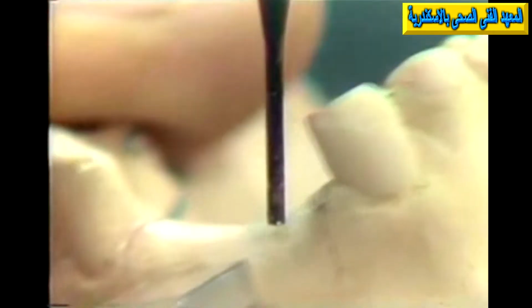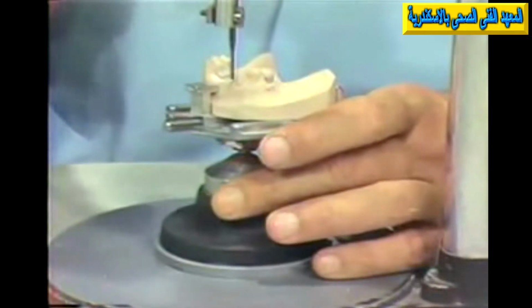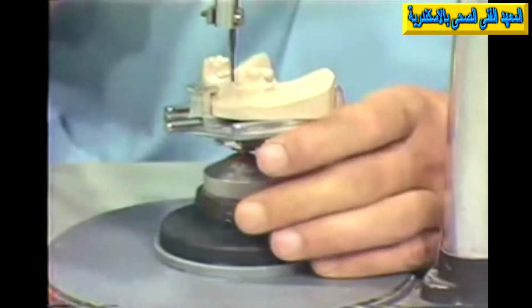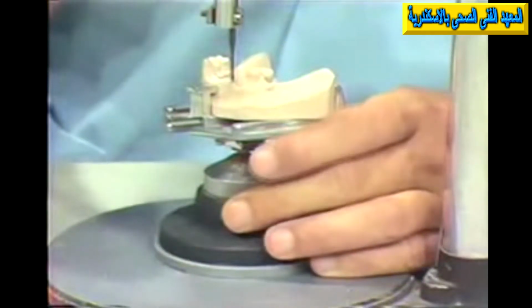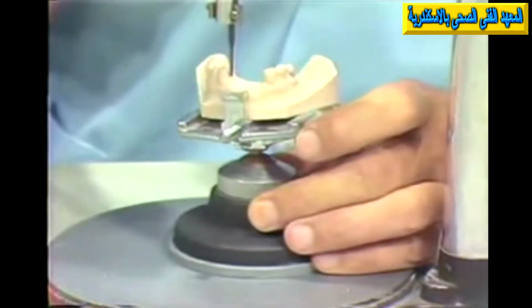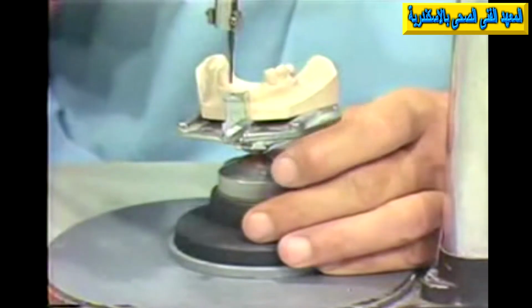On the other hand, if we chose a path much more straight up and down, so that the replaced tooth in this area could almost slide right down that mesial plane, we could then fill that space and perhaps have a much more aesthetic shape to our incisor. It would look much more normal. In this particular case, this would be a direct determinant of the path of insertion. The path of insertion here would allow us to make a very aesthetic anterior tooth setup, whereas a very unfavorable path of insertion would block this possibility from our use. We would not be able to make a real aesthetic-looking setup.